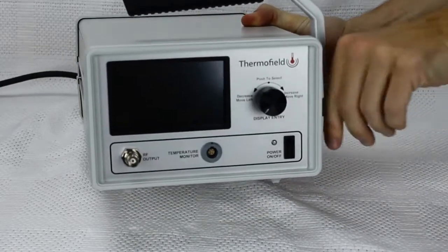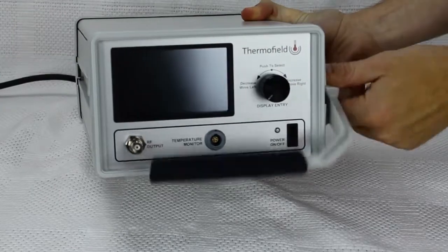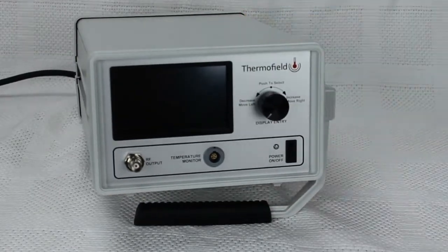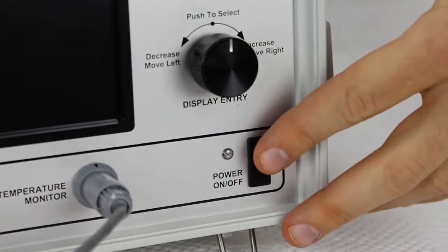For easy viewing, rotate the handle so it's underneath the unit. Now that everything is plugged in, you can switch the unit on.